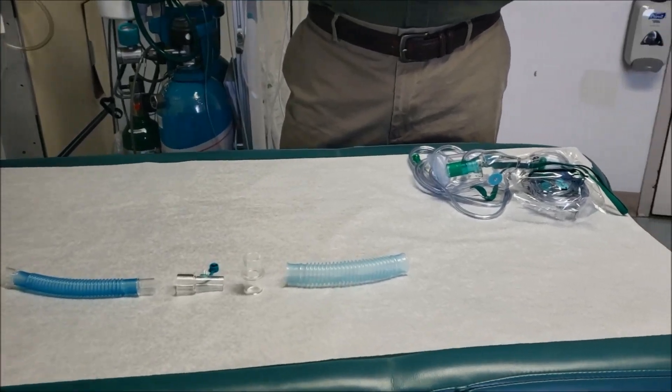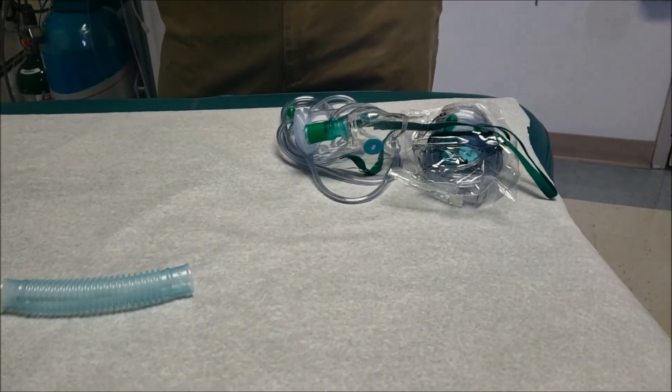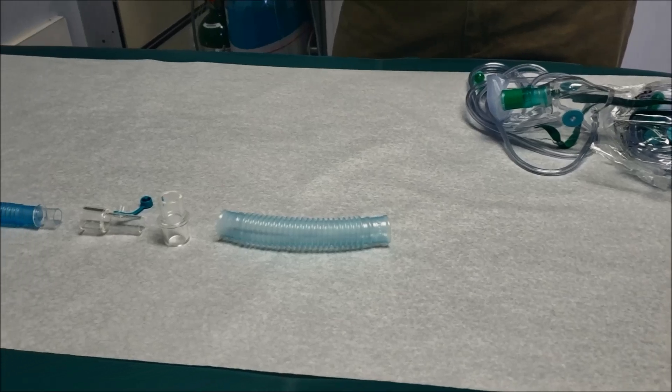Hello, this is a quick hit on the setup for nitric oxide administration for a right heart cath.